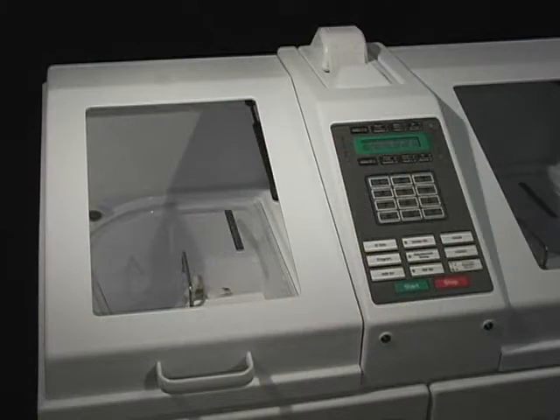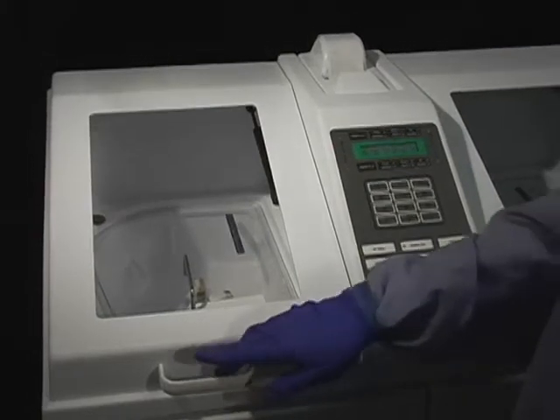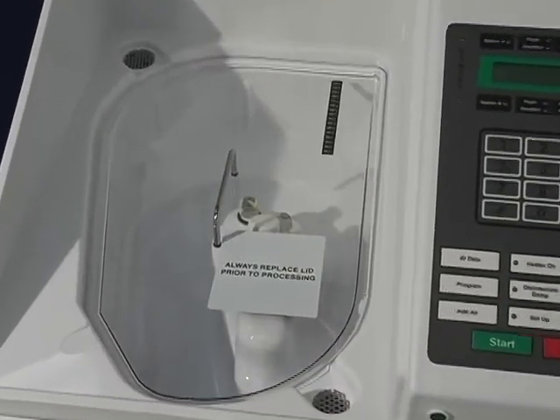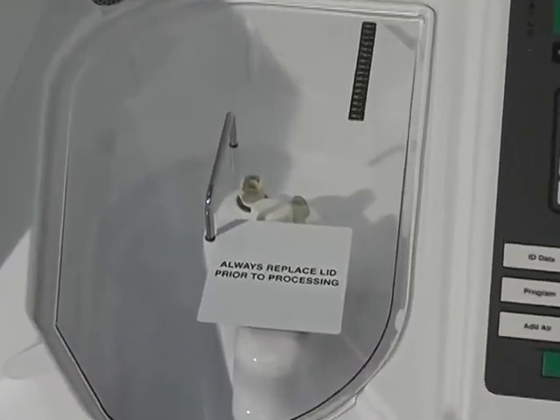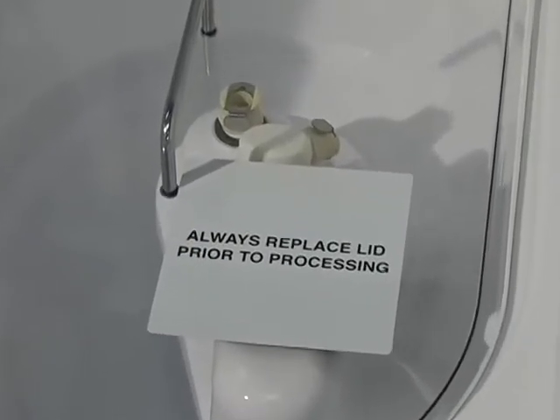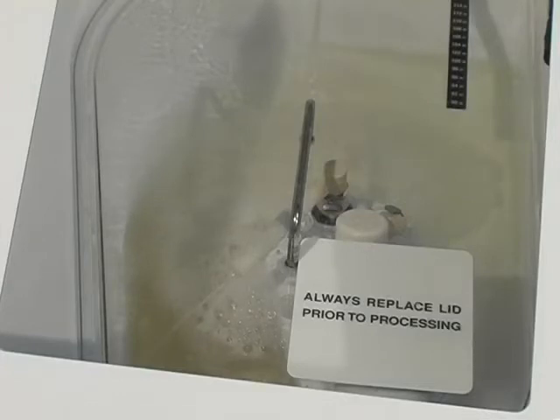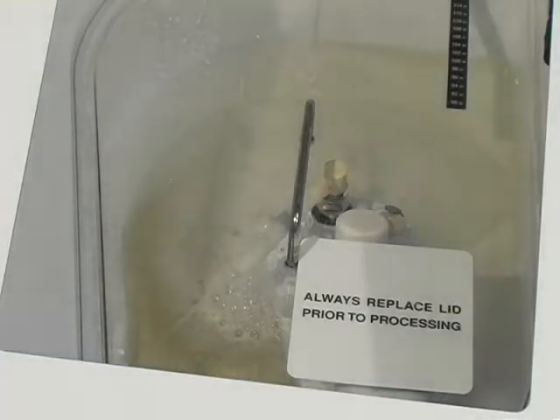The dual cover design offers double protection from disinfectant vapors. The DSD-201 minimizes vapor and fume exposure as compared to manual reprocessing. Medivators has data on file to show that, with proper air flow and air handling systems, glutaraldehyde-based products, including Rapicide, can be used in Medivators reprocessors safely and below the maximum exposure limit of 0.05 parts per million.